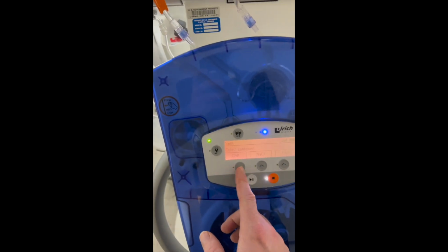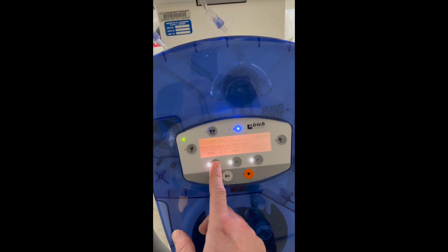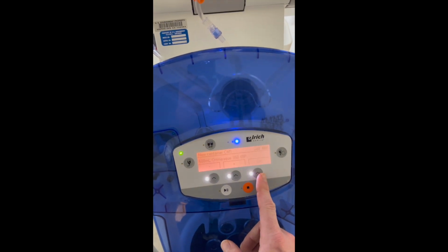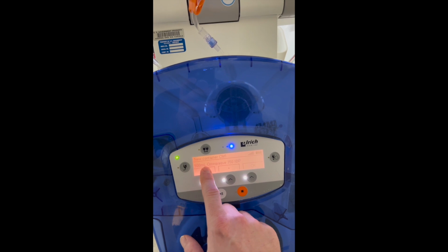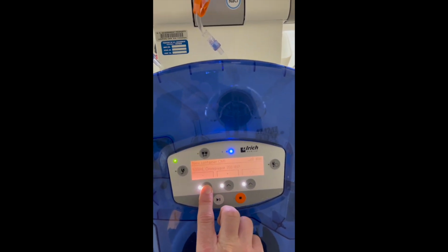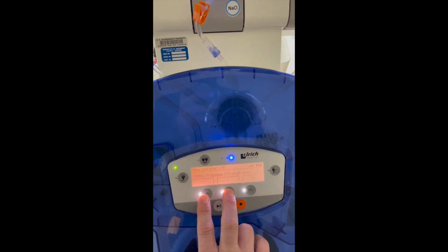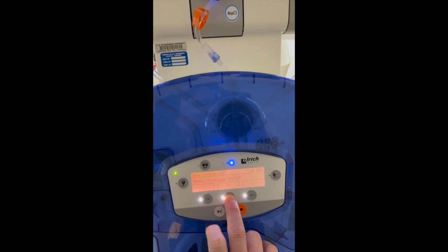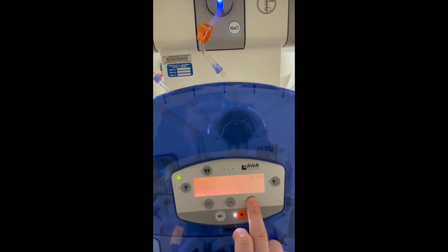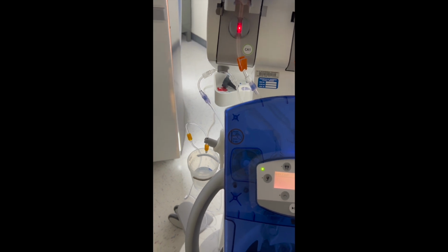So if we are selecting a new one to replace, we'll go ahead and click this. We'll say it's a new container, and it'll say okay. If we ever need to change this, say it's 300 instead of 350, these buttons will go ahead and change it. 300 single, 350 single, 320. You can also go up to 350 or 300. We're using 350 right now. So I'm gonna go ahead and say okay. It's gonna start venting.